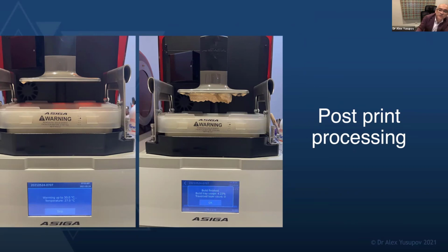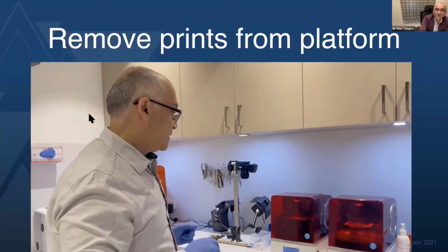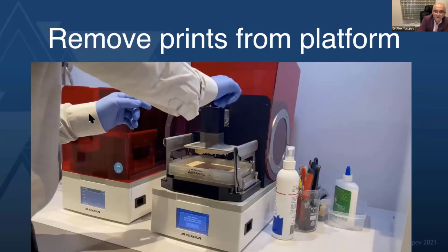So how do we post-process these prints? Well, very simply. So now the print is finished. We just come to the printer. We'll just gently open it up. We undo the screw here that holds the platform.